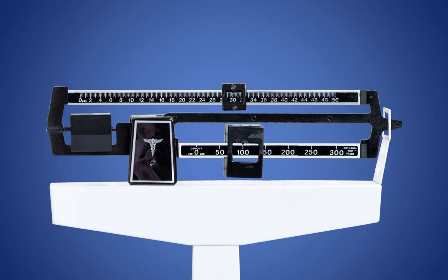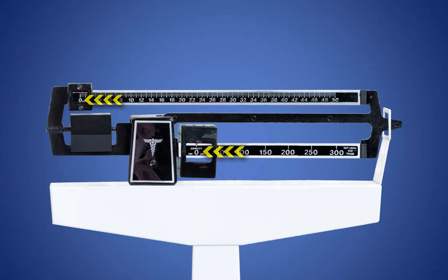Here's a general concept of how the scale works. First, make sure the scale is calibrated by placing the large and small weights at the zero markings. Then make sure the balance bar is floating in the center of the balance window. Once you have the patient on the scale, adjust the large and small weights until the balance bar is once again floating in the center of the balance window.